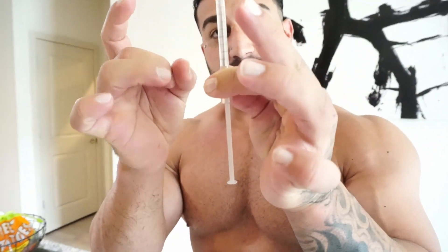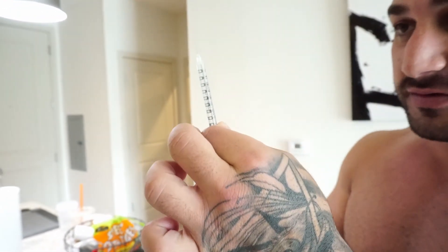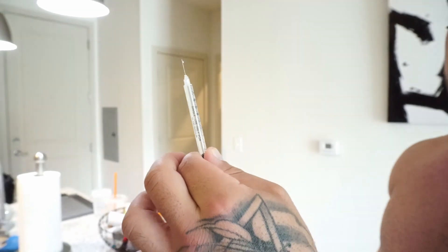Now what we're gonna do — hold the syringe this way — we're gonna push it through. You see a little air bubble on the top? You're gonna flick it, then pop the cap off so you can see, and then you should see a little bit of air come out the needle. Just like that — that's how you backload it into an insulin syringe.